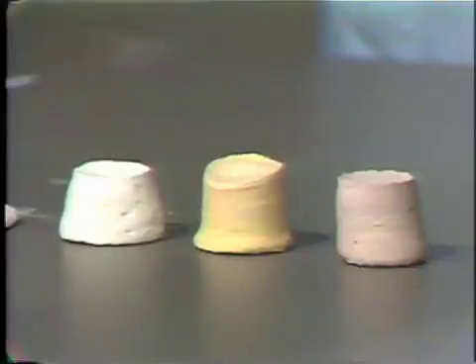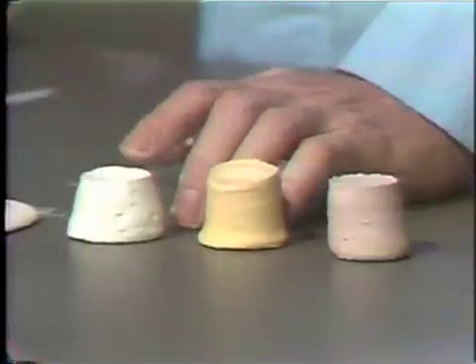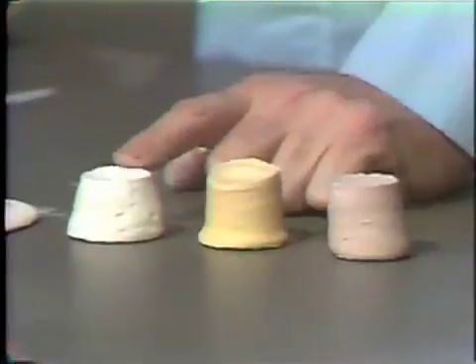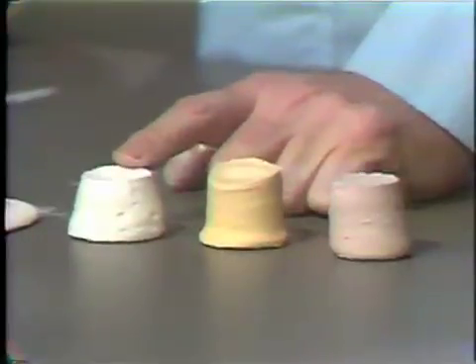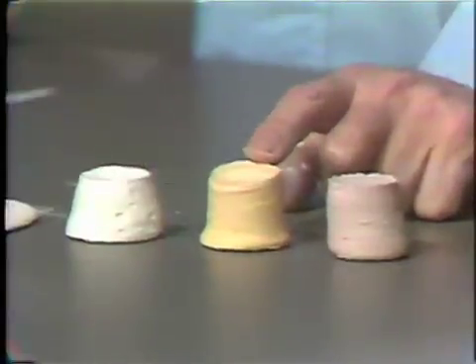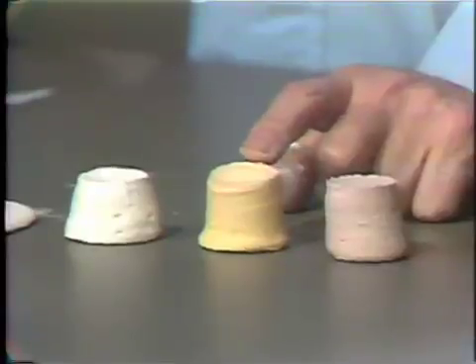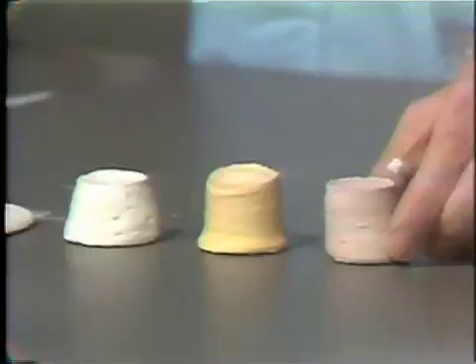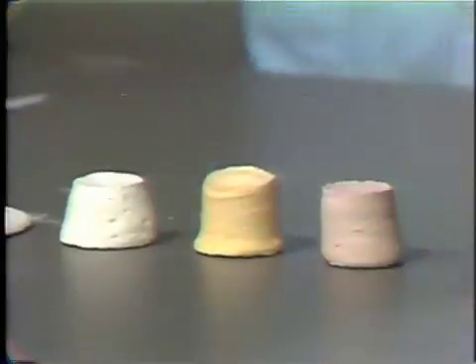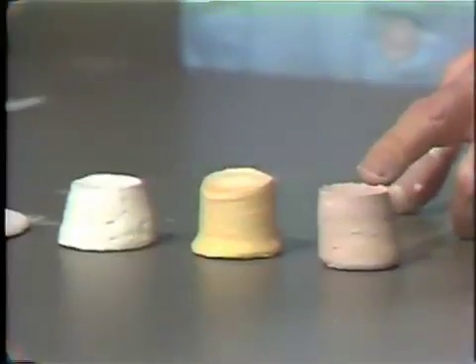As a result of this, we can use different amounts of water with these two materials. As you recall, we used essentially 50 to 55 milliliters of water for 100 grams of model plaster. We now can go with stone and use 100 grams of stone mixed with only 30 milliliters of water. On the other hand, 22 to 24 milliliters of water is used to mix with 100 grams of improved dental stone.